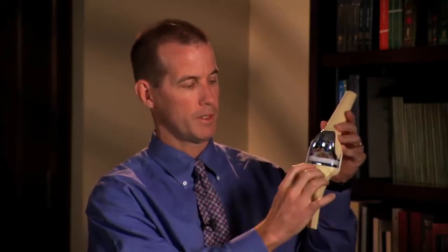If you look at this model here, you can see the components of the knee replacement. This is the femoral component and the tibial component — the one that sits on top of the shin bone. The bone is cut perpendicular to the floor here, or perpendicular to the ankle, and the component is placed into the bone in that position. Similar cuts are made along the femur.